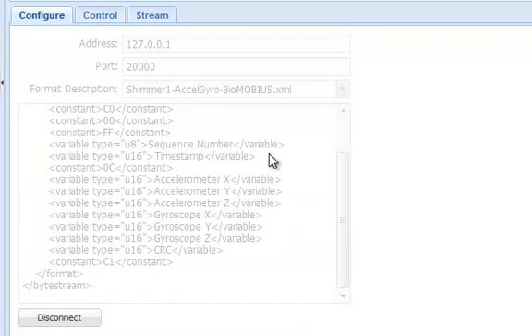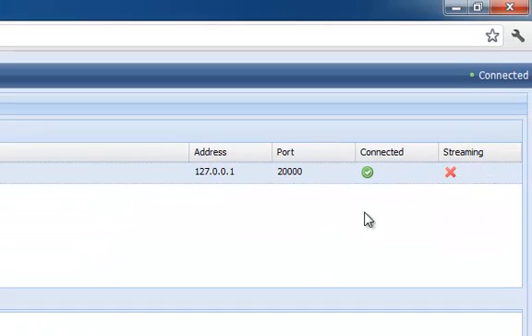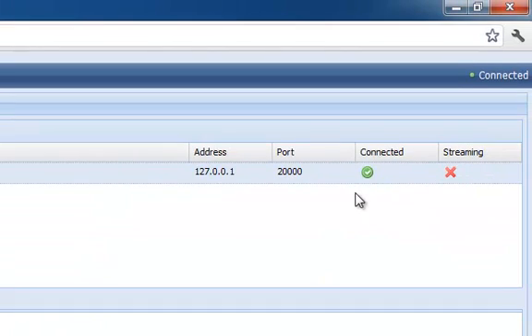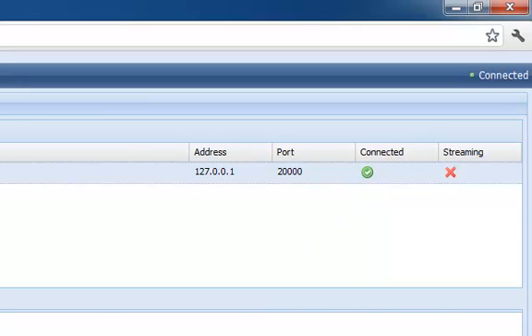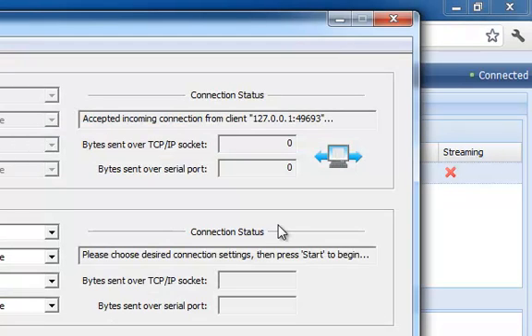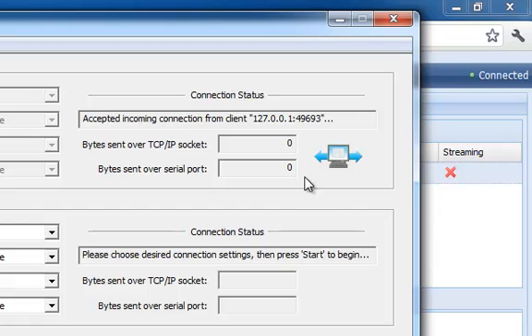Once connected, the grid shows an updated connection status for the Shimmer. I can also verify the connection using Bloom. The program should show a connection icon and a message detailing the address from which the connection was accepted.